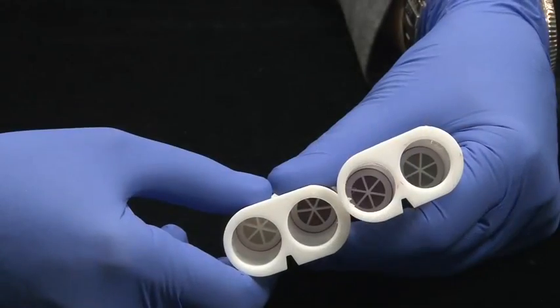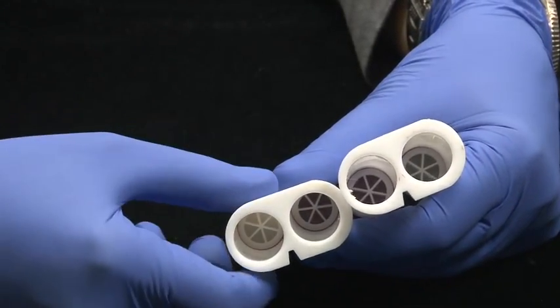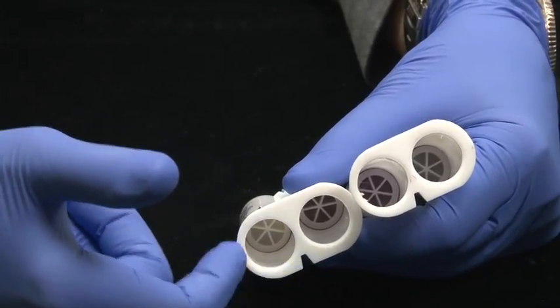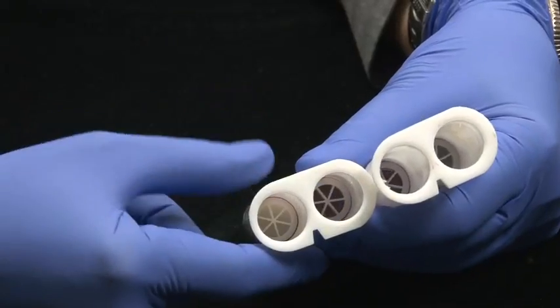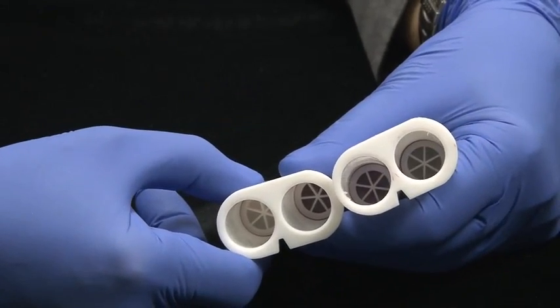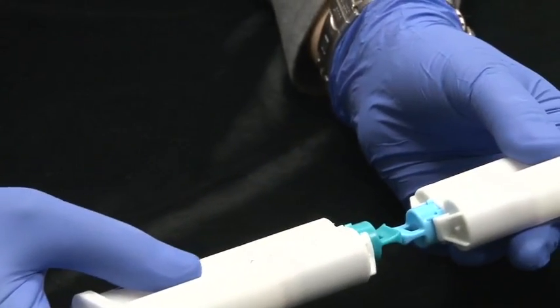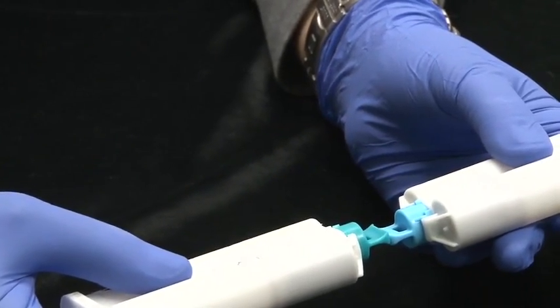If you look into these two syringes, this is another manufacturer, you can see that the two slots at the bottom and the purple inside that you see and the white don't line up the same. So if I put these two together, I'm going to end up with white on purple and that's not going to work.